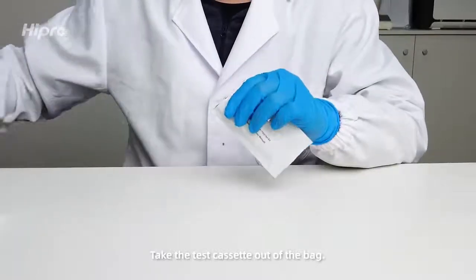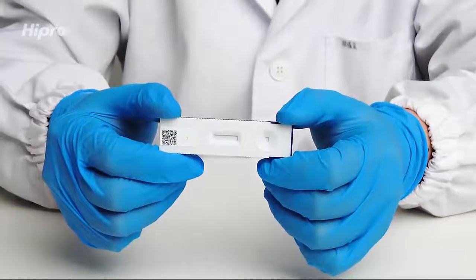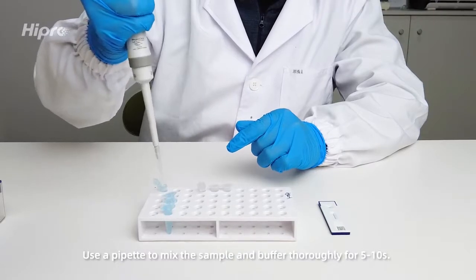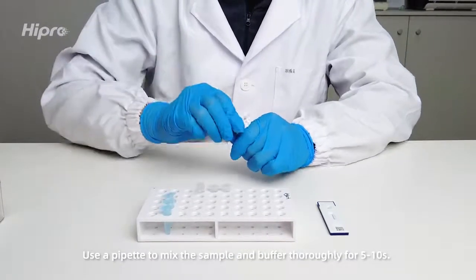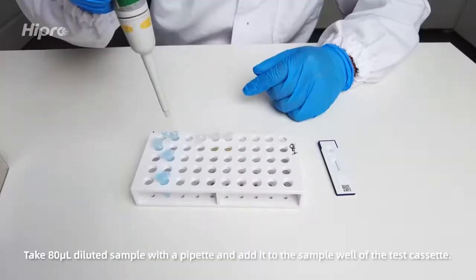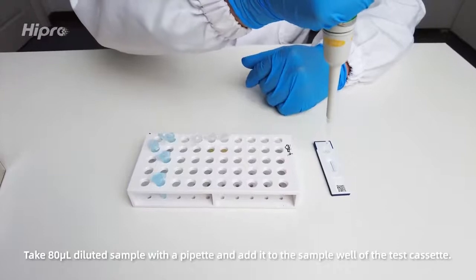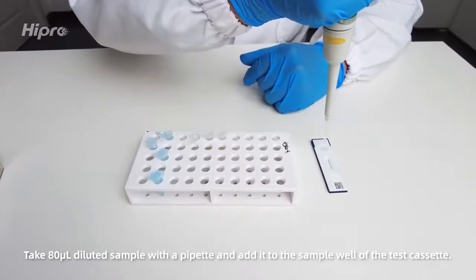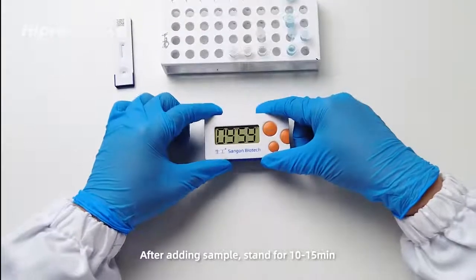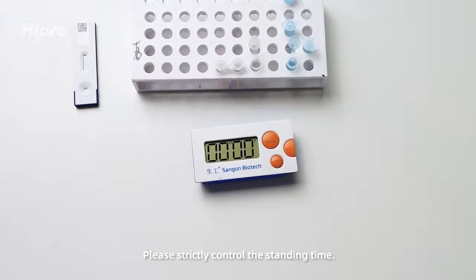Take the test cassette out of the bag. Add sample: use a pipette to mix the sample and buffer thoroughly for 5 to 10 seconds. Take 80 microliter of the diluted sample with the pipette and add it to the sample well of the test cassette. After adding the sample, stand for 10 to 15 minutes. Please strictly control the standing time.